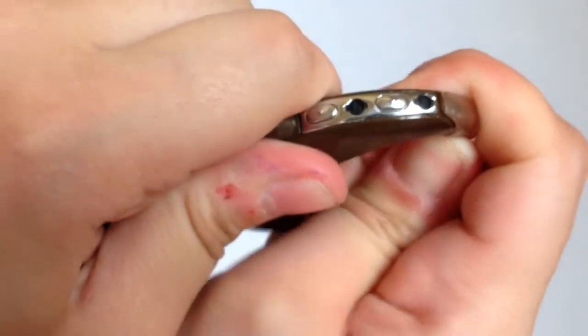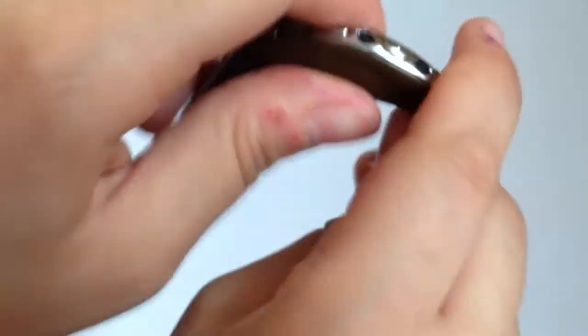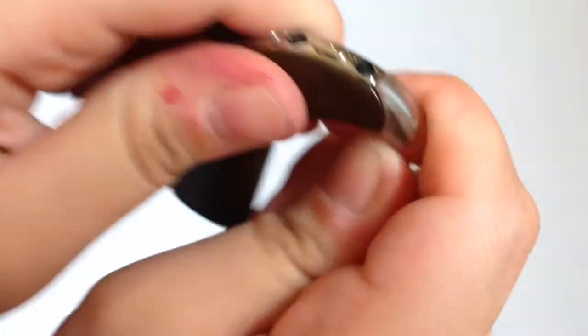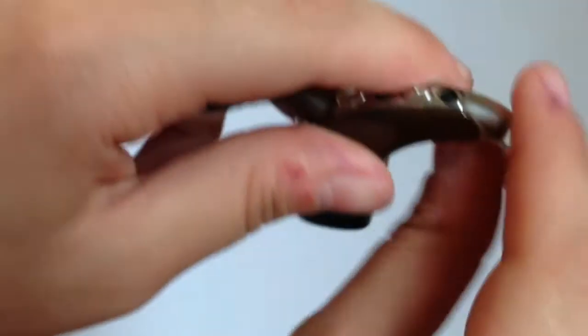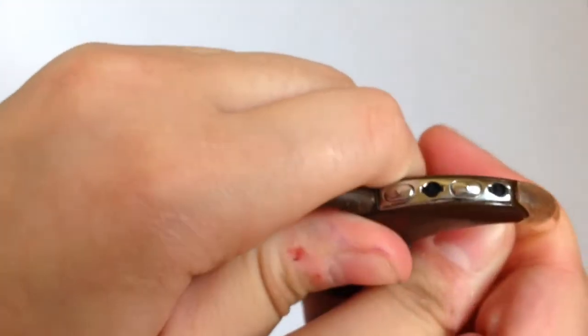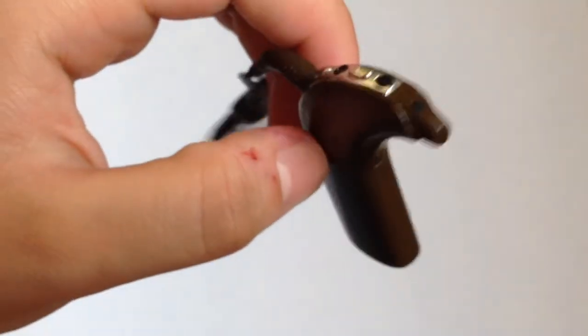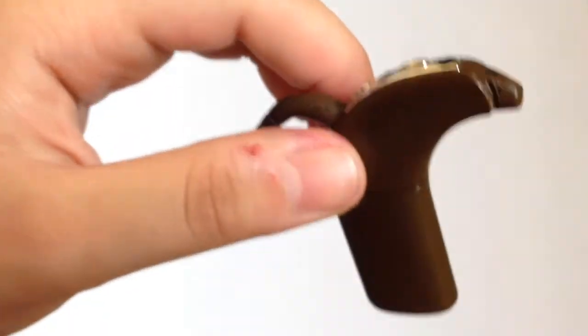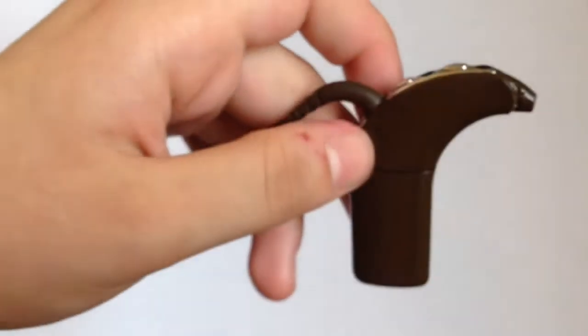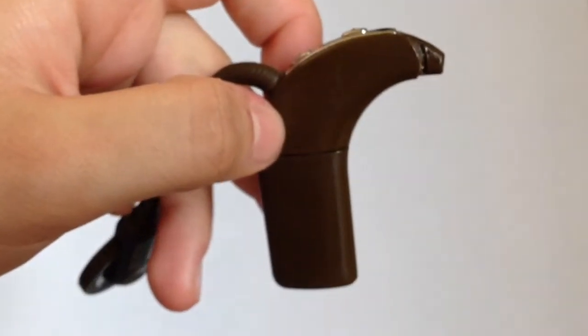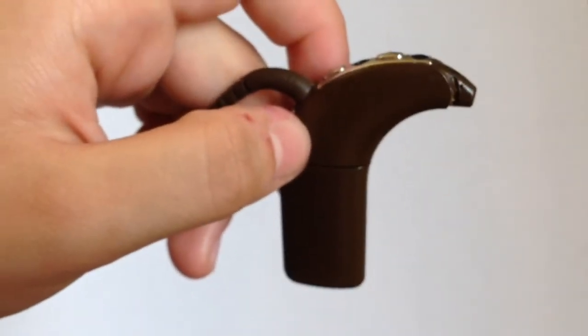But it's safer. See, that's why I'm saying it. It's kind of harder, but I have done it before and I feel safer when I do it. I just feel like I want to do this, but I'm trying to show you guys how to do it this way. Okay. So that wasn't a very good demonstration. I'm going to try to show you guys again. But like I said, that way to take it off is a bit harder.